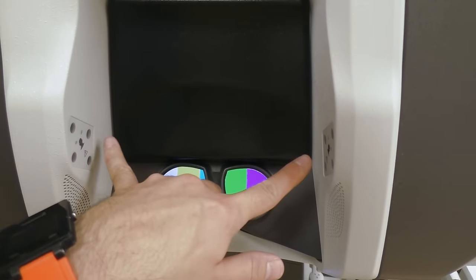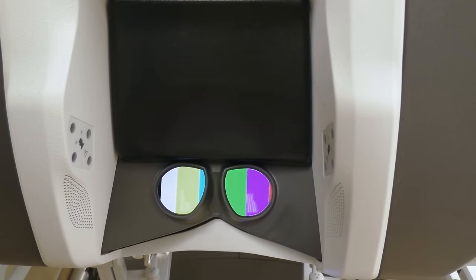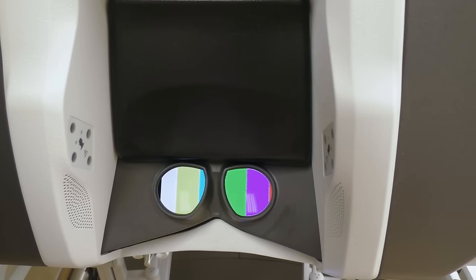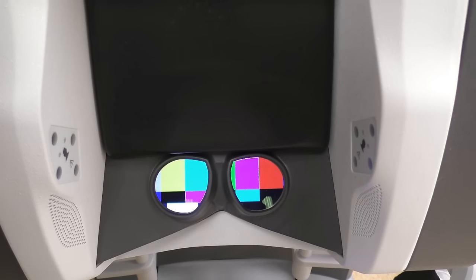Up here we have two speakers on either side of the surgeon's ears and also two mics, so while the surgeon is sitting in the console they can talk to everybody else at the field. There's a speaker system on another piece of the robotic system, and the surgeon can speak through that speaker system. Vice versa, there's a mic on the field and the surgeon can hear the conversation going on at the field if needed.